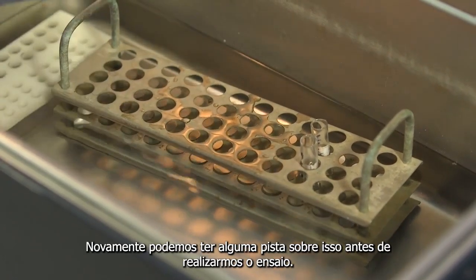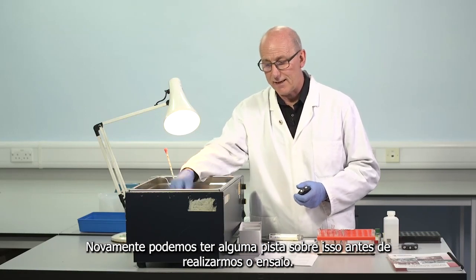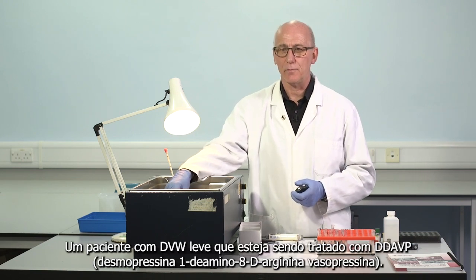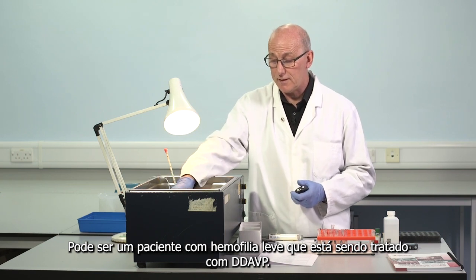If we anticipate a rather high level of factor VIII, again we may have some clue about that before we undertake the assay, perhaps a mild von Willebrand's patient who's been treated with DDAVP, maybe a mild hemophiliac who's been treated with DDAVP.